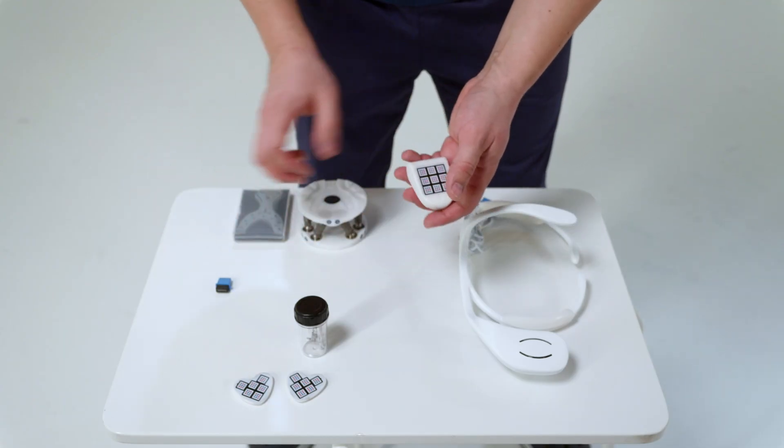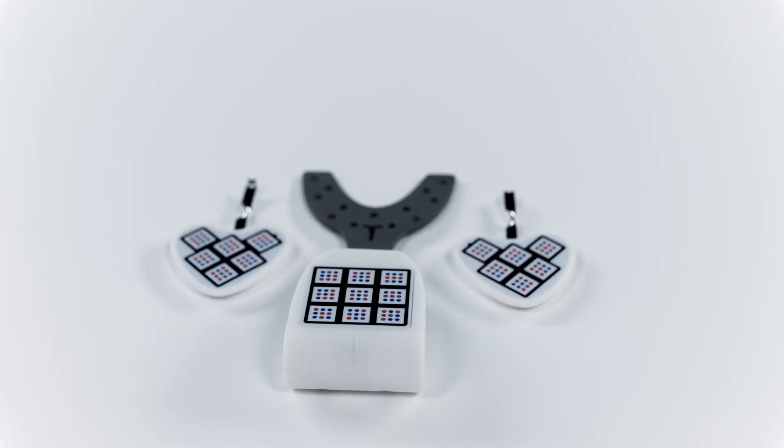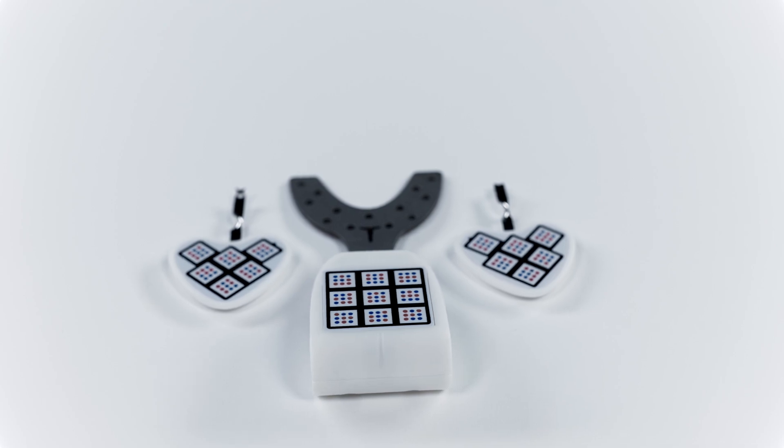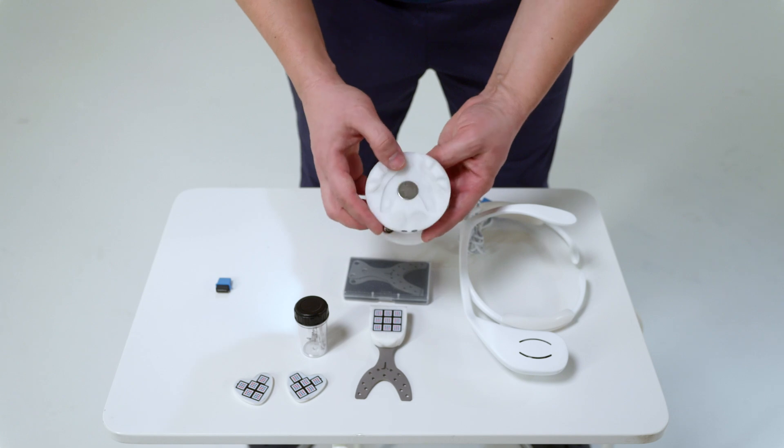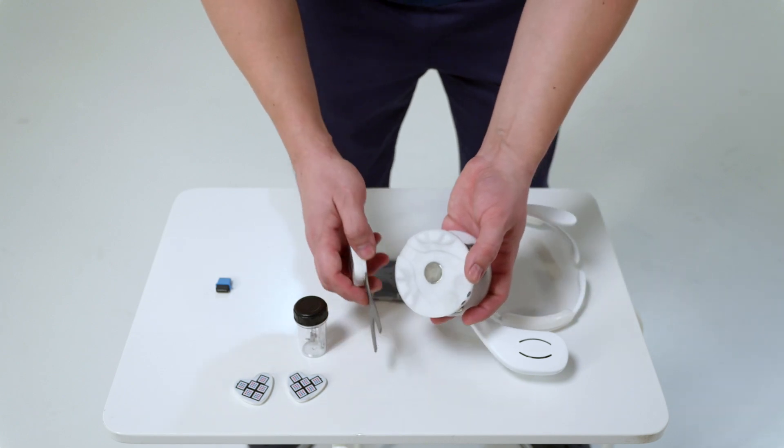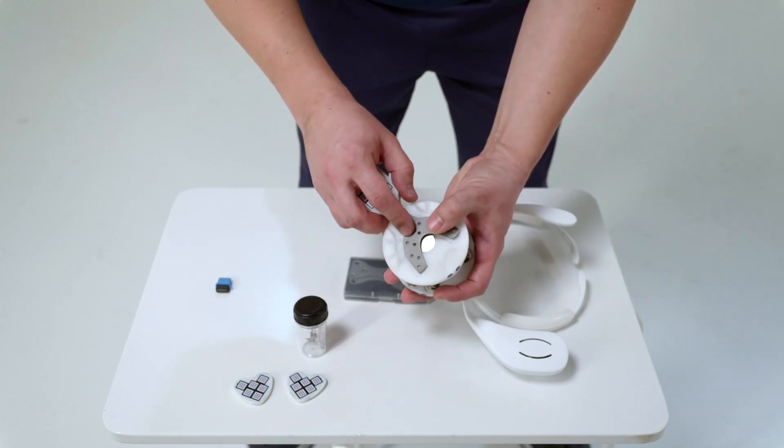Digital Arc. This is an electronic sensor with a bite fork. Stand for plastering in the articulator. A fork appears on the stand.